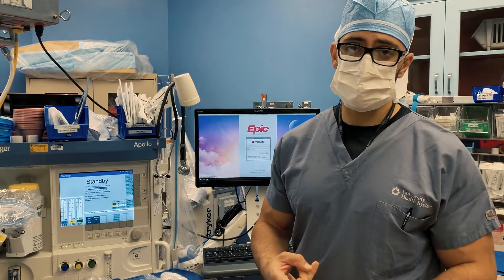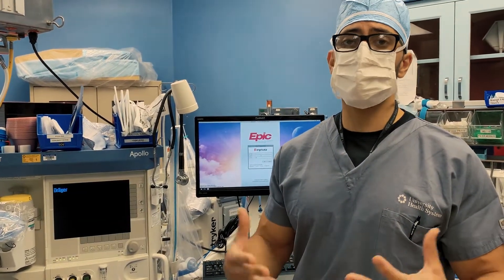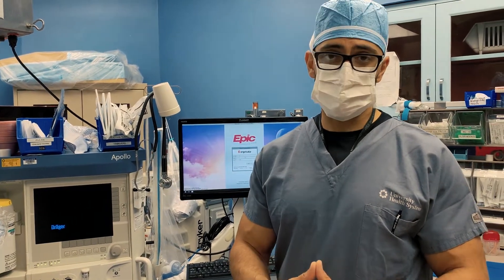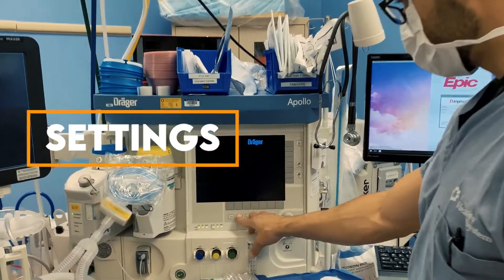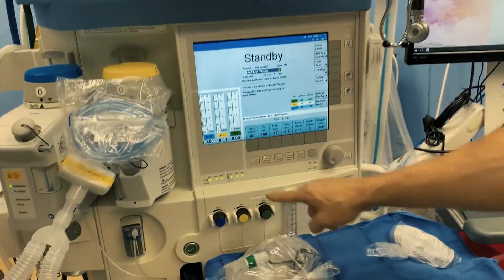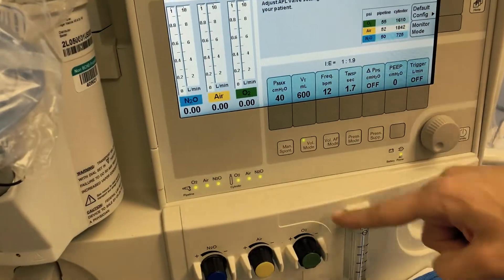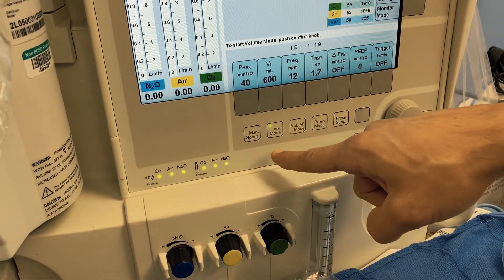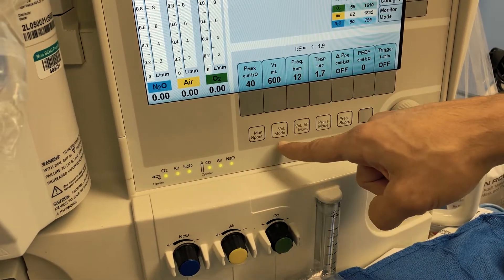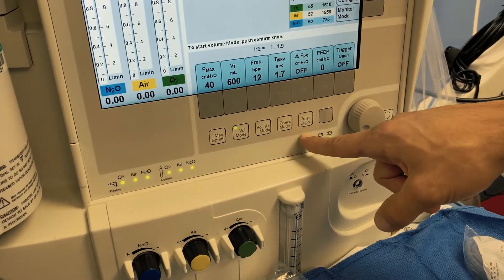Let's talk about volume mode, which is a very popular mode we use in the operating room. On the ventilator, you have manual spontaneous, volume mode, volume AF mode — which is just a specific version of volume mode — and pressure mode and pressure support. Let's click volume mode.